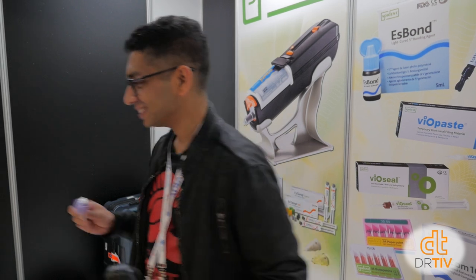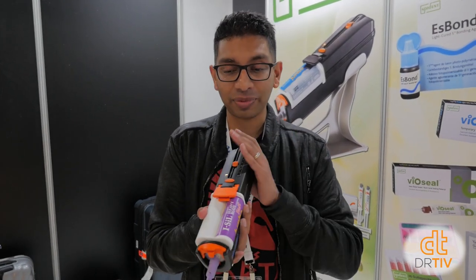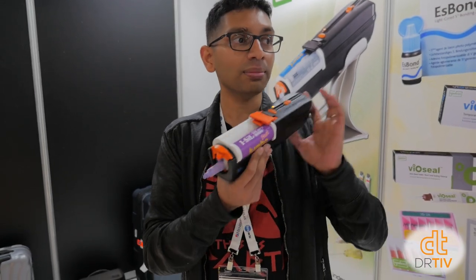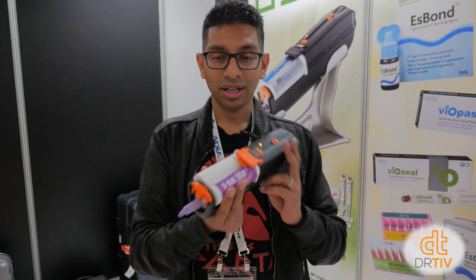I should take an impression, but I won't. The vacuum mixer — I think it's $425, and each cartridge is about $35. You can buy that from Independent Dental. Pretty awesome.